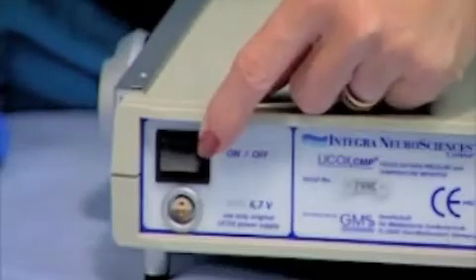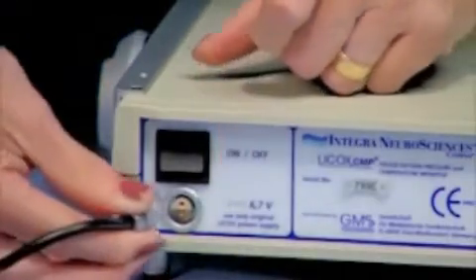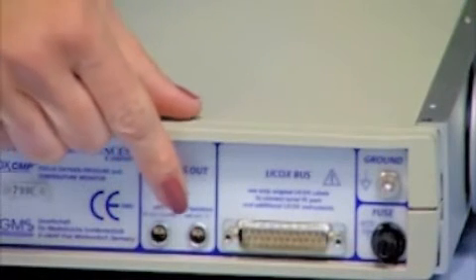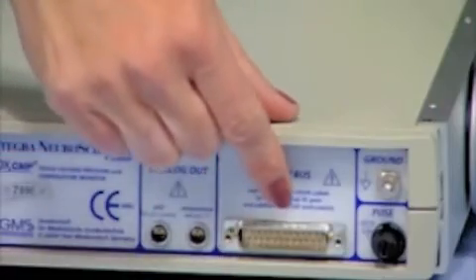The rear panel of the monitor has a power switch and power cable connection which should be placed into a grounded AC outlet. There are temperature and oxygen analog output connectors and a serial data connector for connection to the bedside monitor.